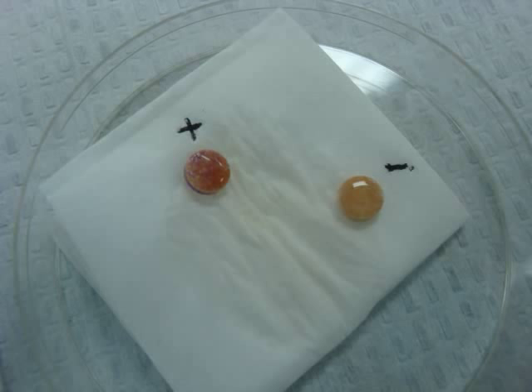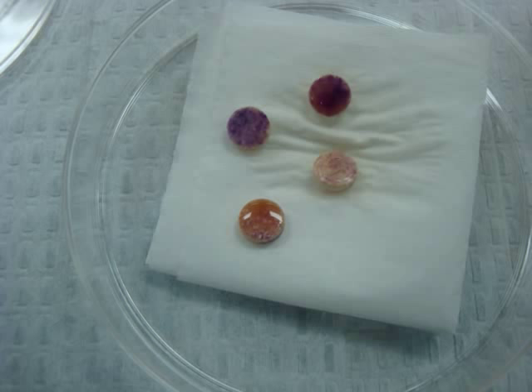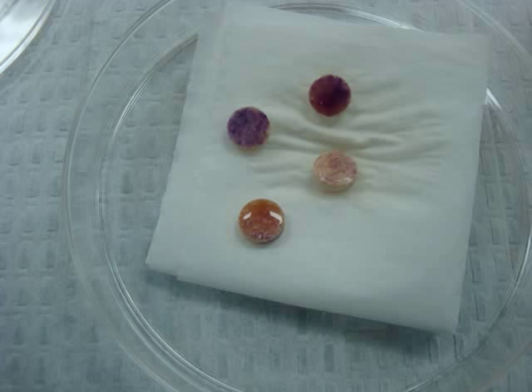Here you can see negative and positive reactions. All the samples shown here are positive.